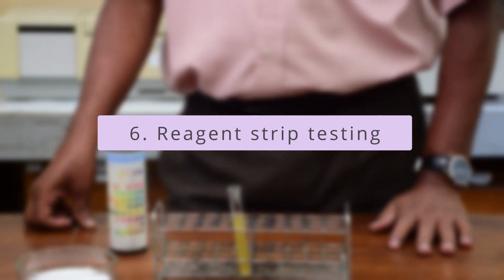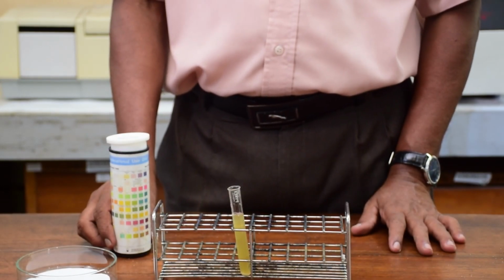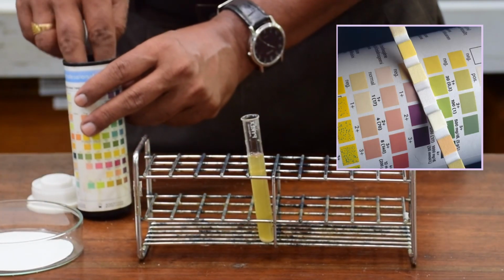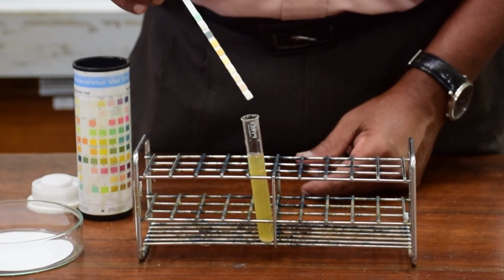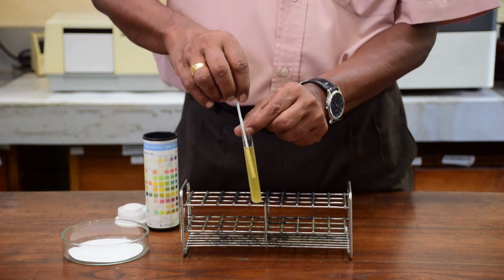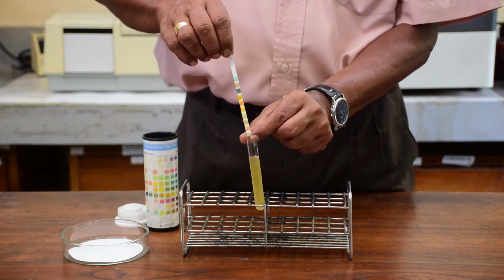Reagent strips currently provide a simple and rapid means for performing medically significant chemical analysis of urine for a number of analytes. These reagent strips consist of chemical impregnated absorbent pads attached to a plastic strip. Let us look at the technique of using this strip. First, dip the strip briefly into a well mixed uncentrifuged urine specimen at room temperature.